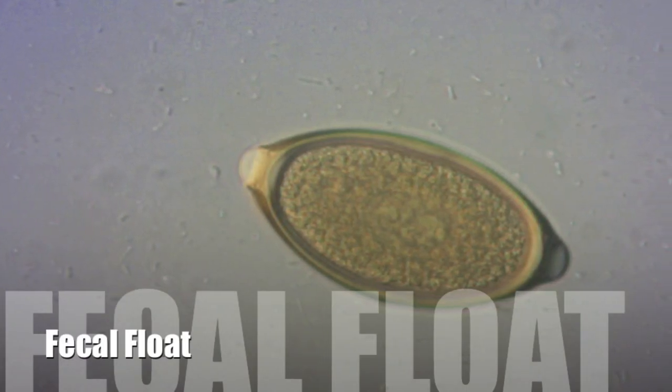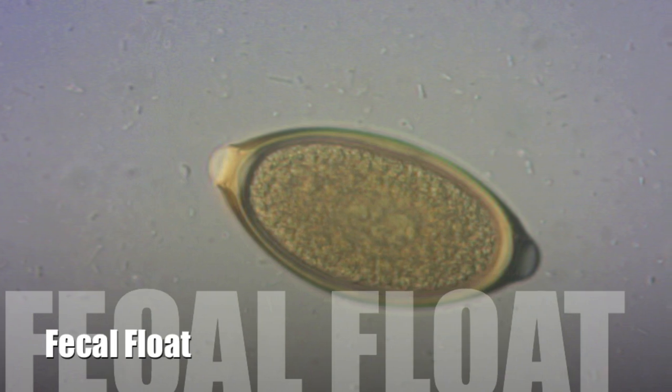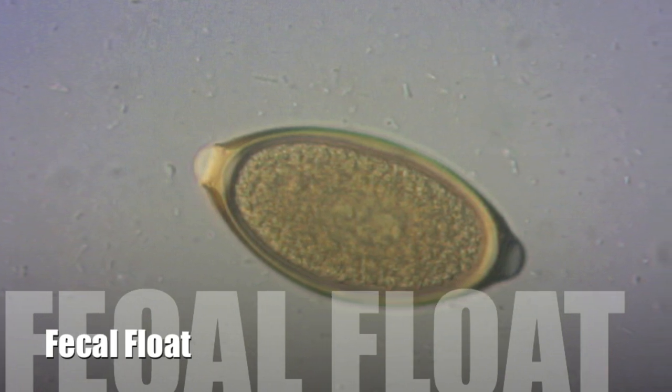The fecal flotation procedure is used routinely to look for various eggs, cysts, and amoeba, which are indicative of parasitic infections of humans and animals.